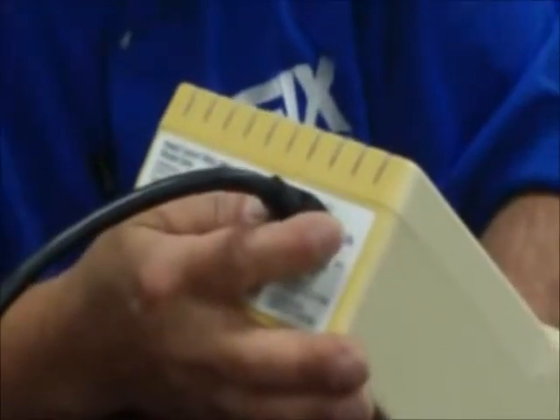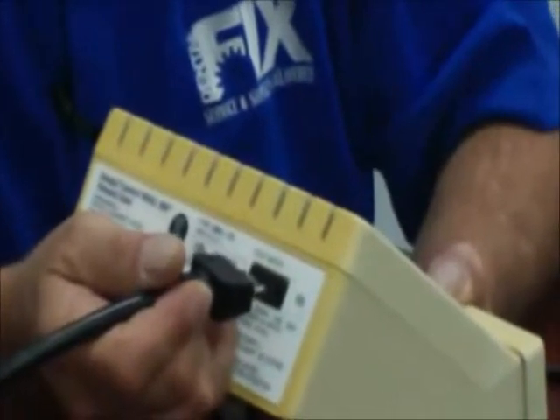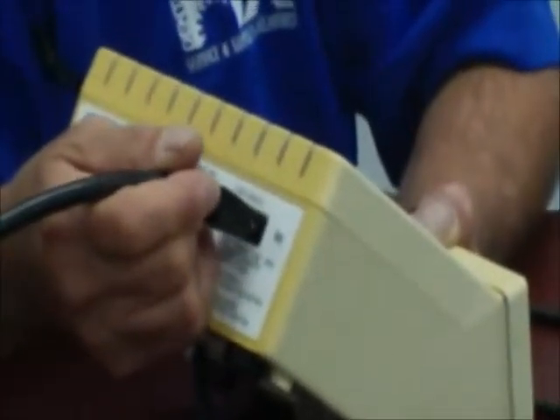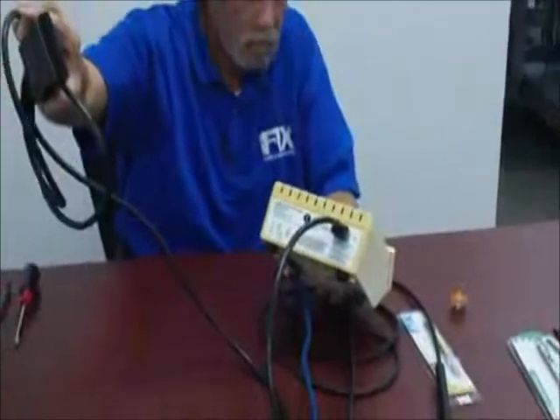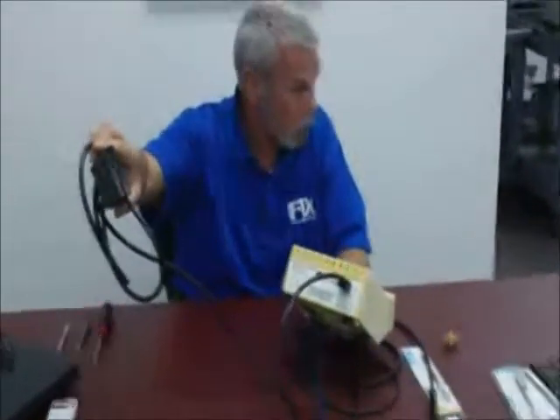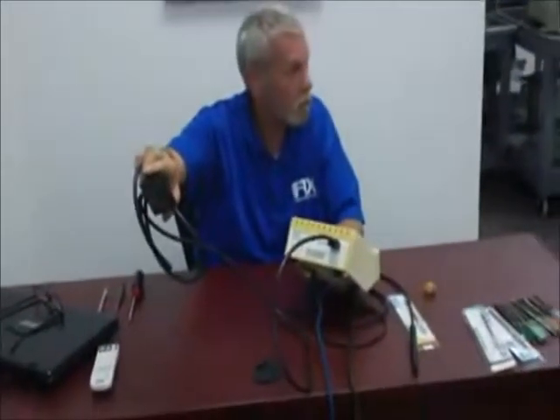Your foot control will plug in from the reverse side of the machine. The first thing you should check when they complain the machine is up is to make sure you have a good connection in the back. Make sure the foot control is connected well. You have plenty of length on your foot control, and the line can be extended with regular wire if necessary to accommodate your doctor or hygienist.